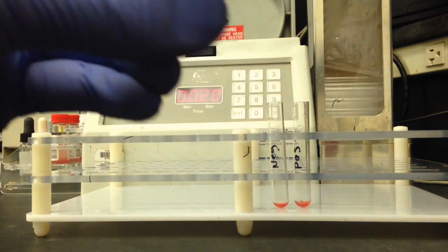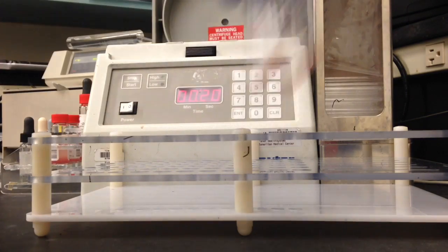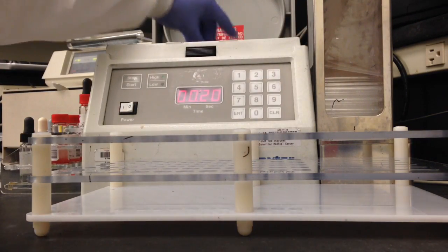And then after we're done adding the indicator cells we're gonna give the specimens a quick little mix and pop them in our centrifuge for 15 to 20 seconds.